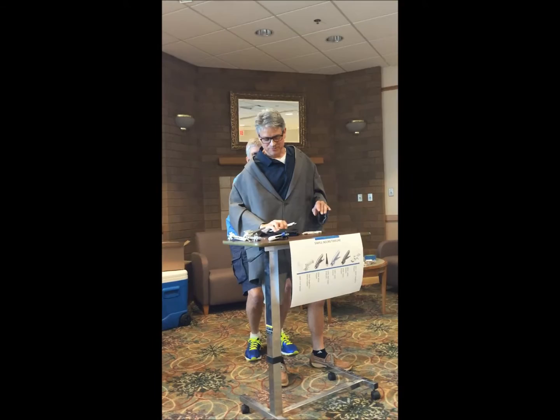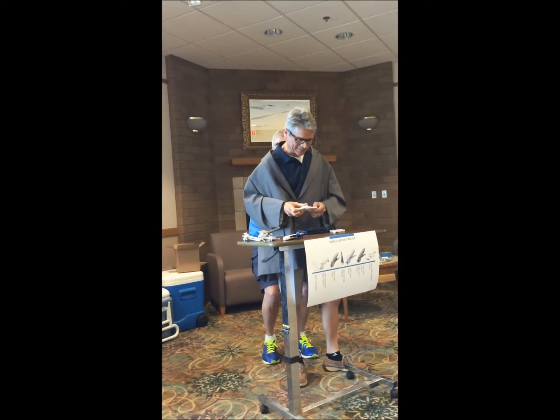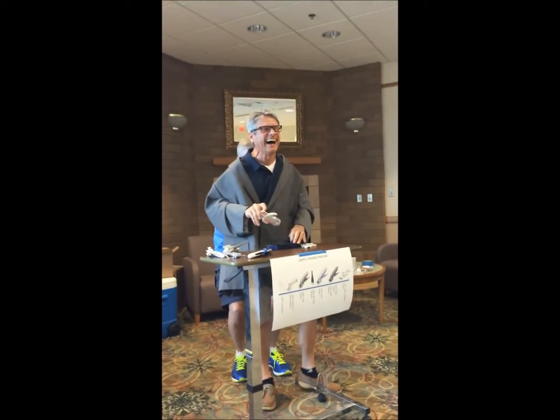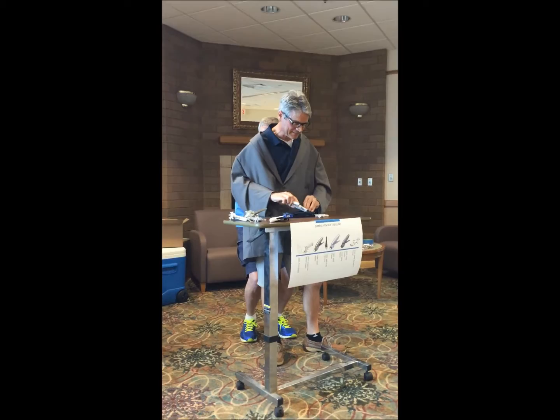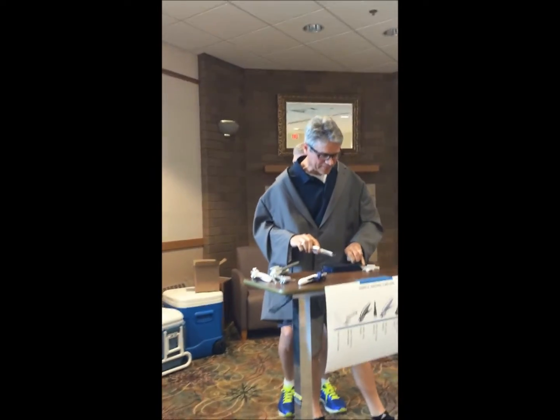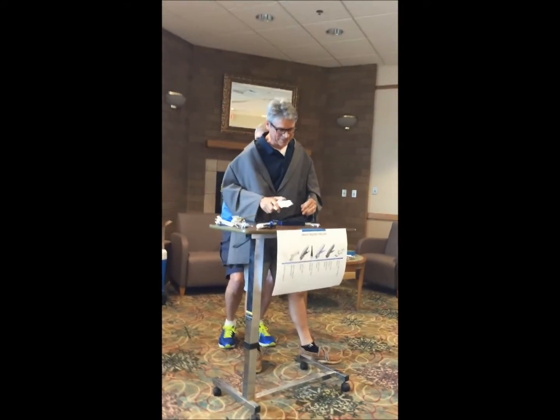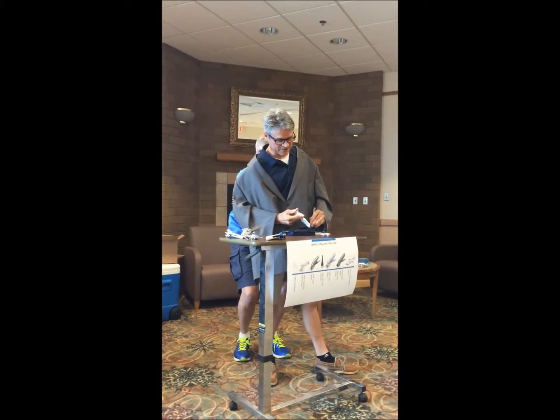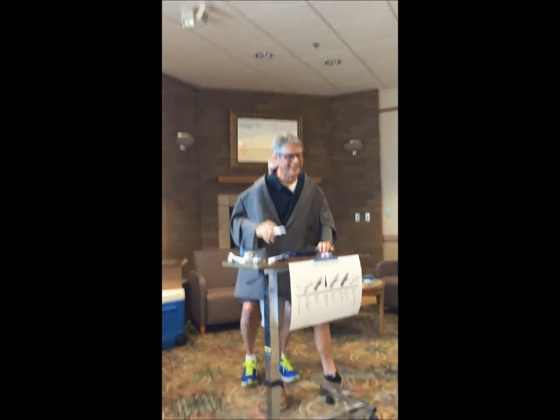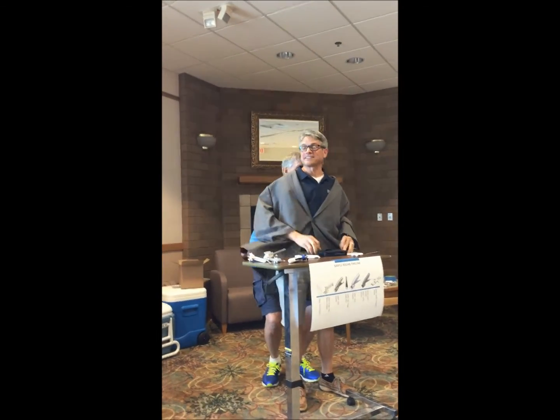Now the challenge is, Dave, you're going to put a staple in. Flip it over — you'll look like most of our surgeons. There's a forcep down by your left hand. You're getting close. So this one's a lot like the other stapler — you just hold it up. There you go. It works great — look at that. There's a staple in there. Anyways, that's how it was built.